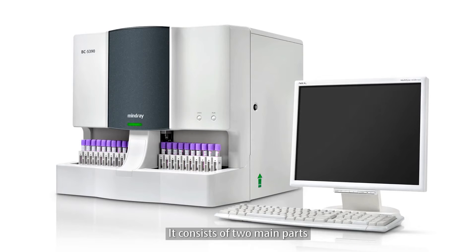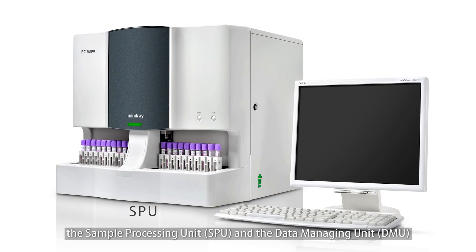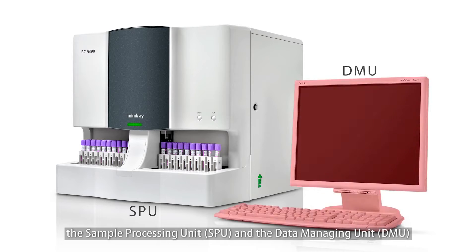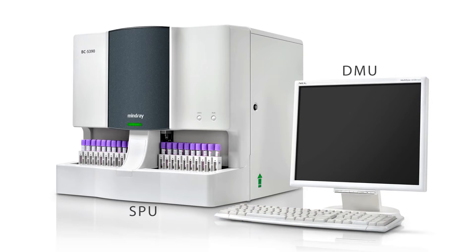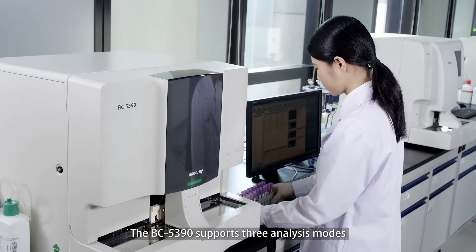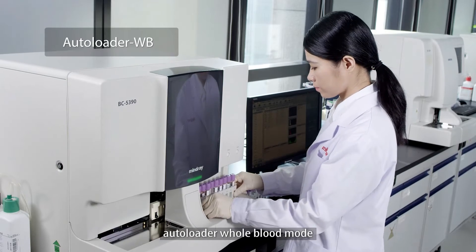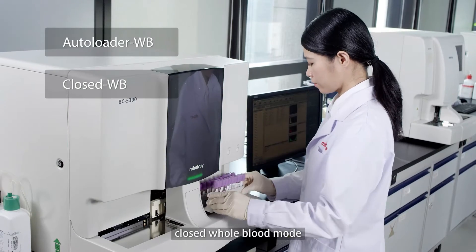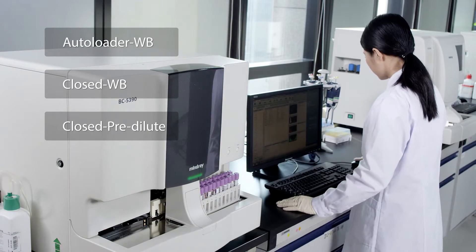It consists of two main parts: the sample processing unit (SPU) and the data managing unit (DMU). The BC5390 supports three analysis modes: autoloader whole blood mode, closed whole blood mode, and closed pre-dilute mode.